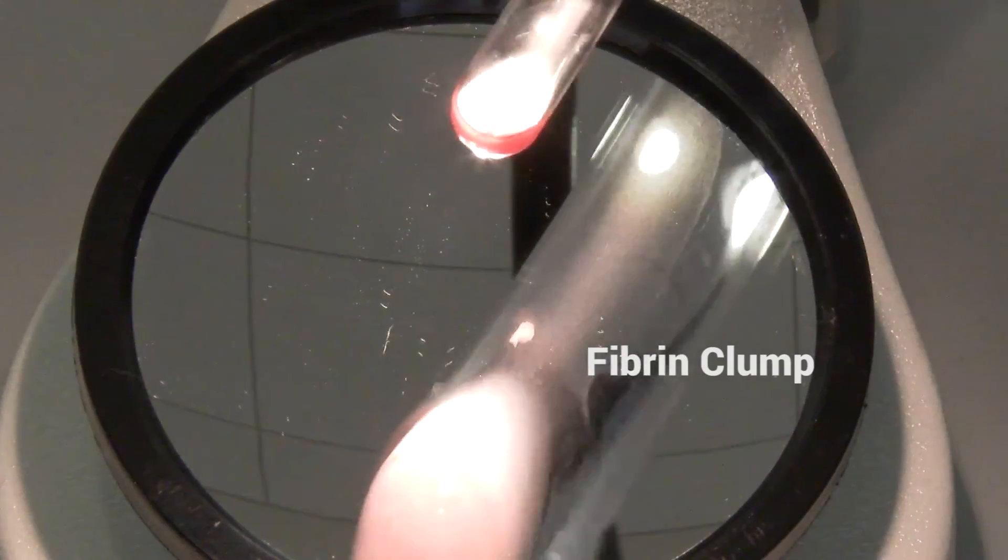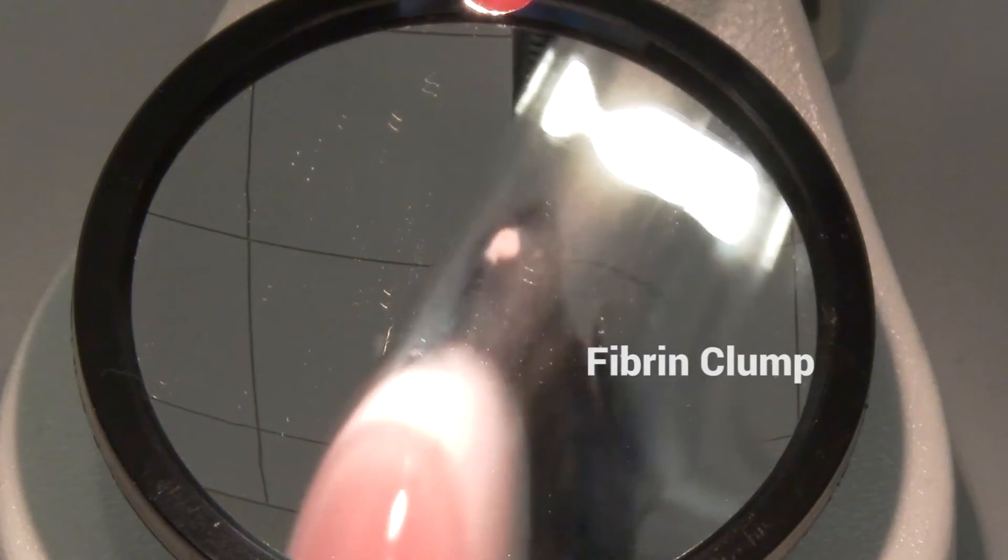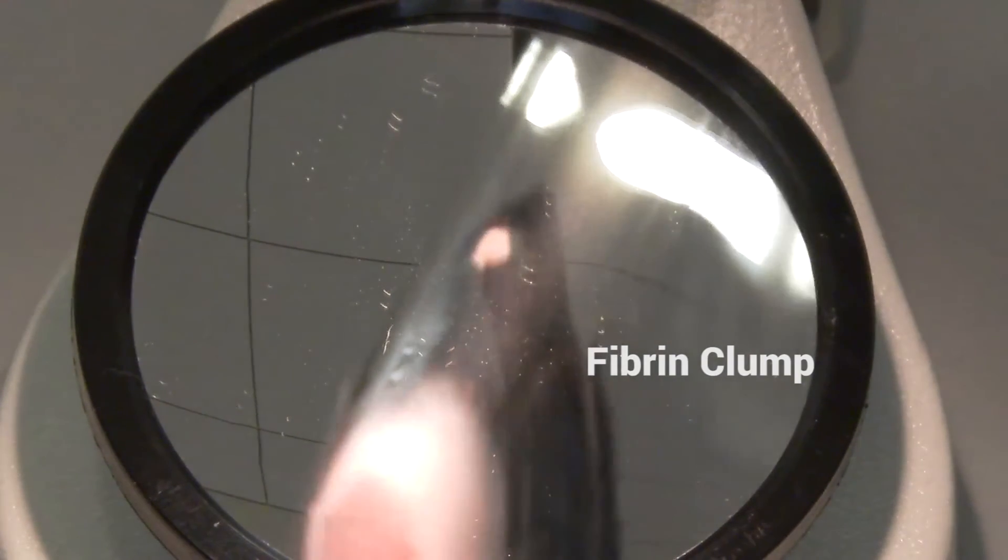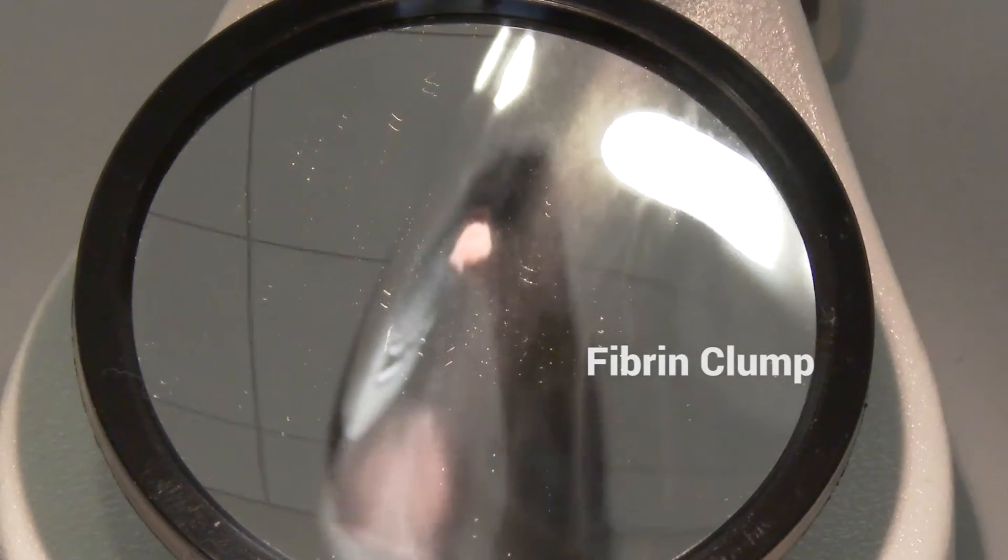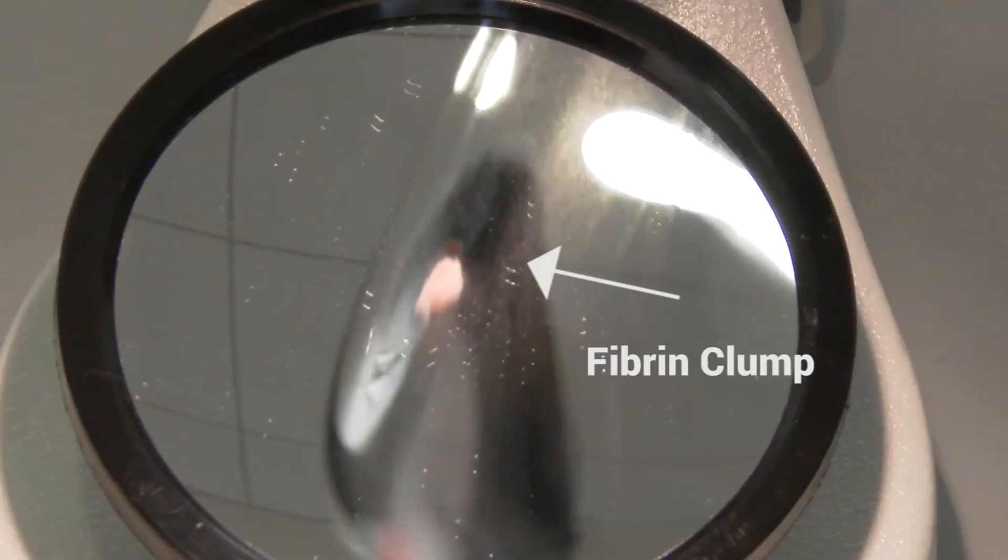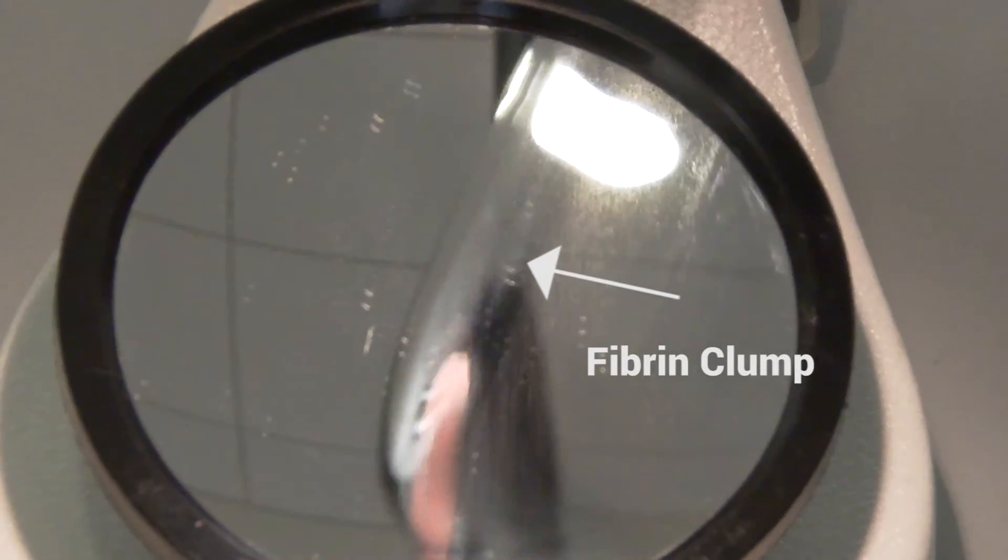Fibrin, when shaken out, can appear to be white or light pink as opposed to the deep red of true agglutination reactions. Care should be taken to properly identify abnormal reactions, pseudo-agglutination and fibrin interference.